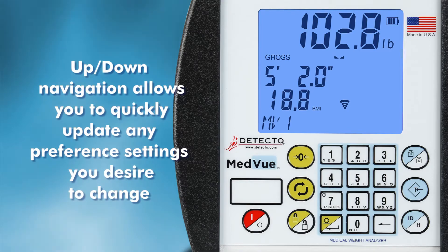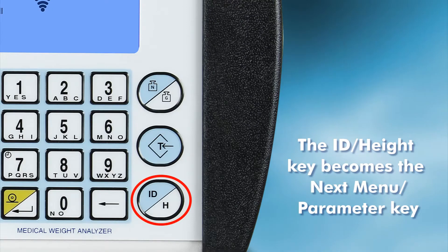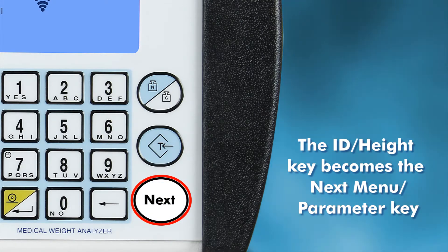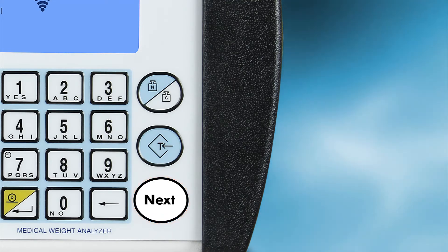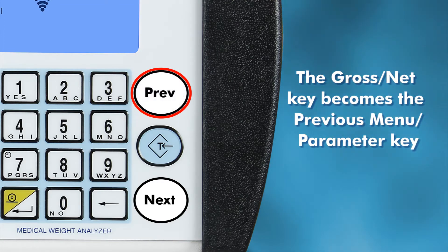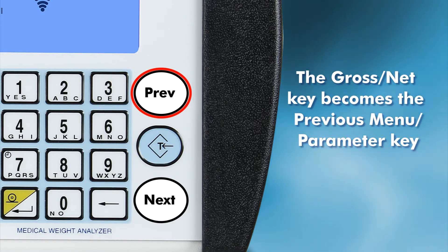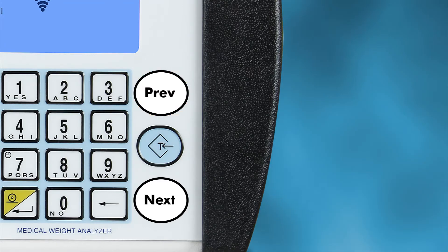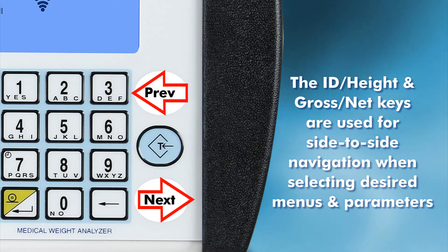Navigation of the menu is done by using the alphanumeric keypad and the following keys. The ID Height key becomes the Next menu or parameter key and is used when the operator wishes to go forward in the menu tree or onto the next parameter. The Gross Net key becomes the Previous menu or parameter key and is used when the operator wishes to go backward in the menu tree or to a previous parameter. Think of the ID Height and Gross Net keys as side-to-side navigation for selecting desired menus and parameters.